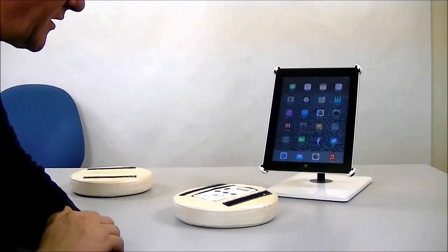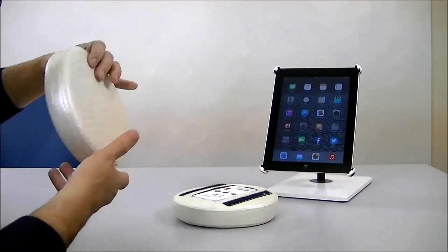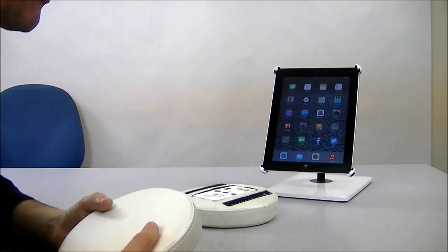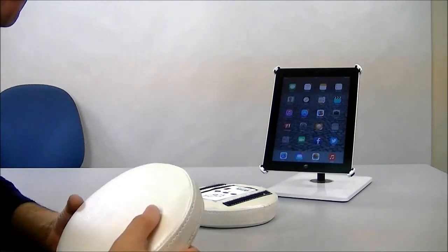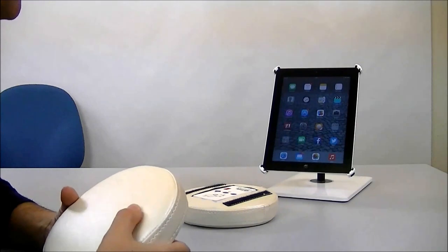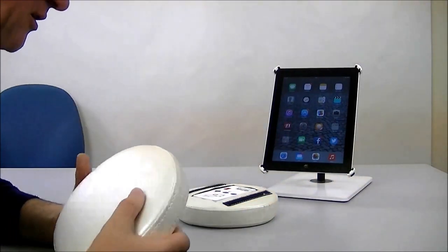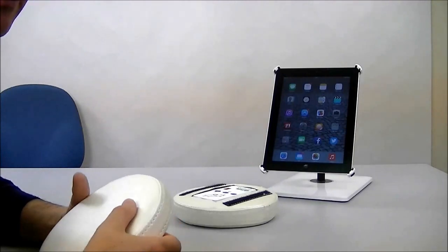I've taken the Kinetic, in this case the Kinetic for iPad, and put it in this cushion arrangement. You could use just a standard pillow or cushion without any difficulty because it's not important that it's kept absolutely parallel with the faces of the cube as some of the other modes are.